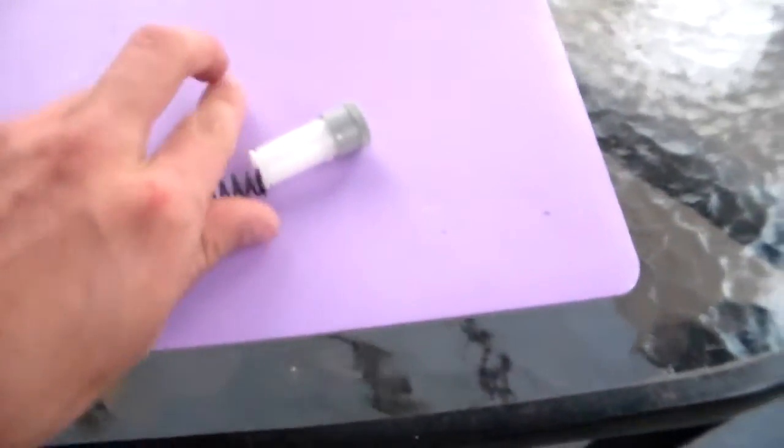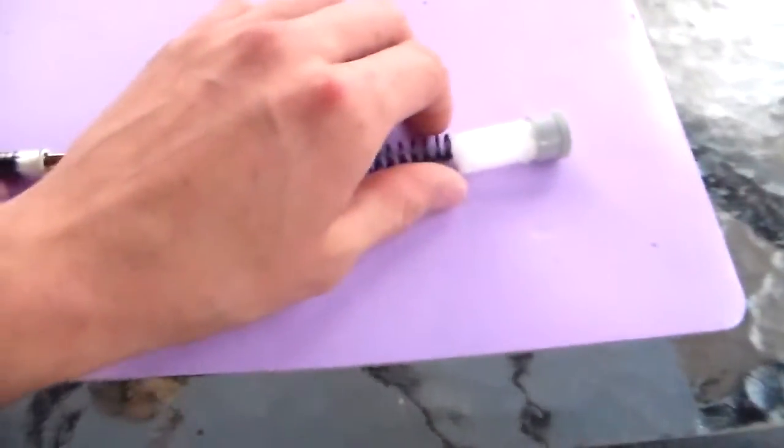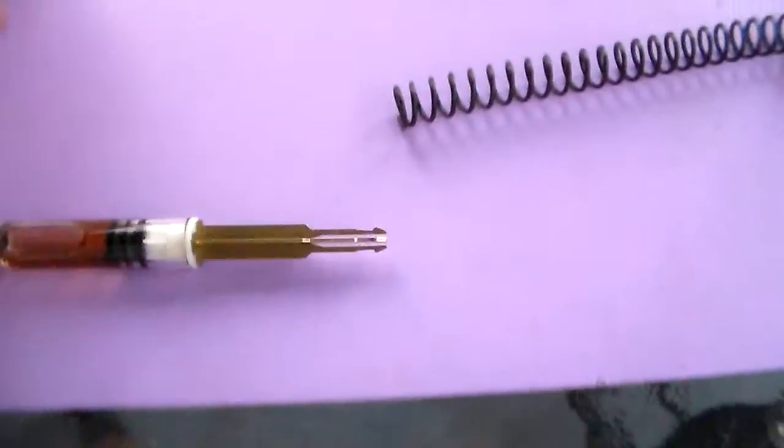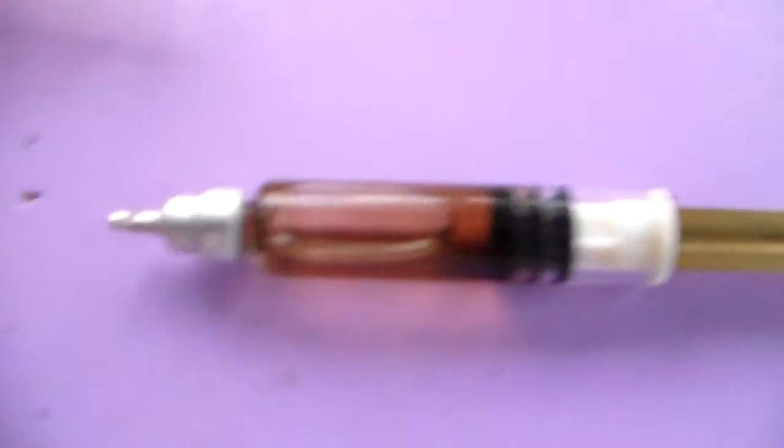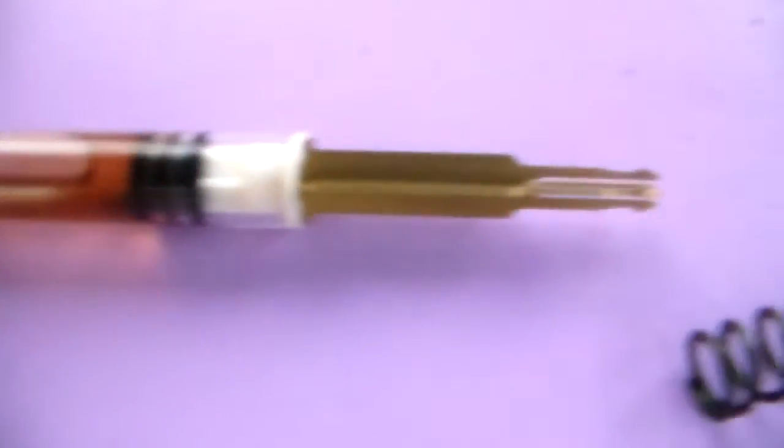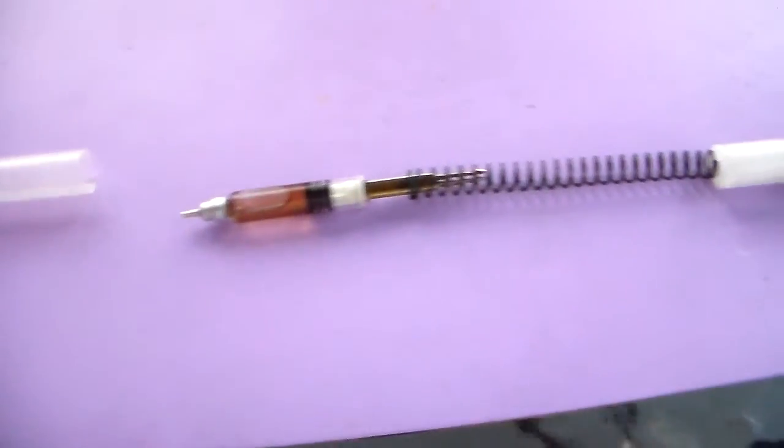Very big. Nice vial of Epinephrine. Intact, actually. Somehow got it apart while it was intact. That may be a first for me.